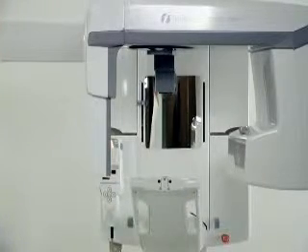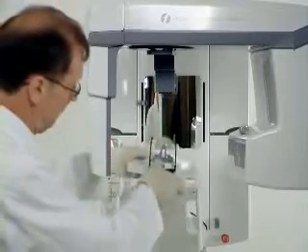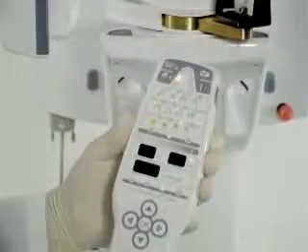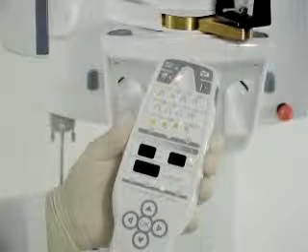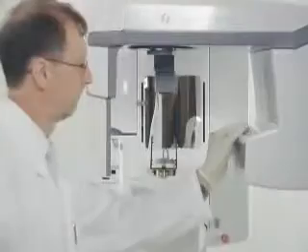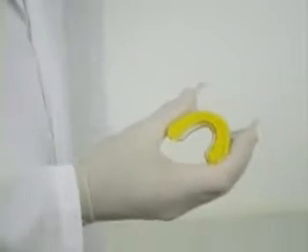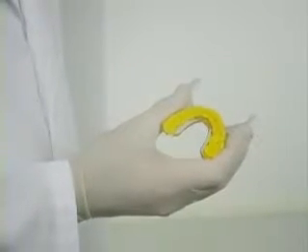Remove the bite index from the VT pan accessory and attach it to the VT projection accessory. Select the bite index position. The lower fixing position is for maxillary and the top is for mandible. Please note that the position for maxillary is horizontal and for mandible at a downward angle.